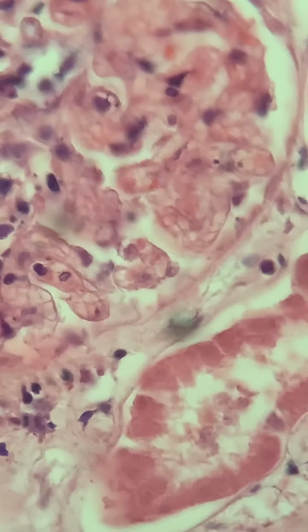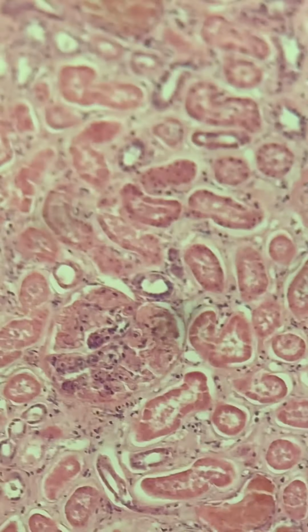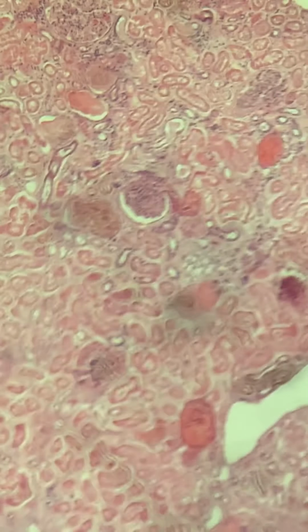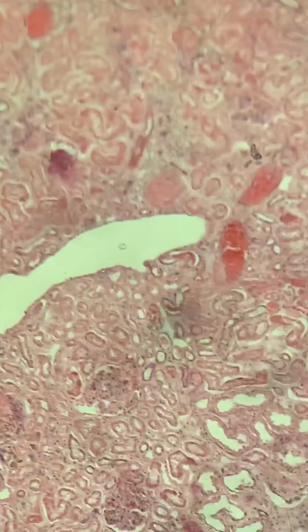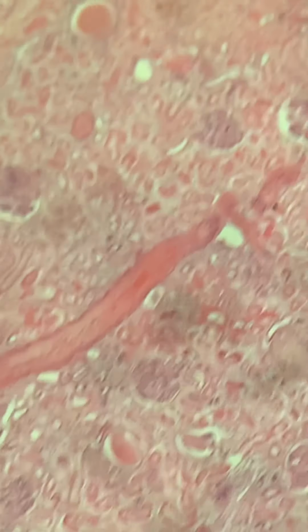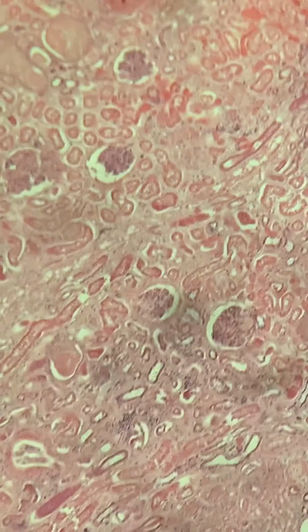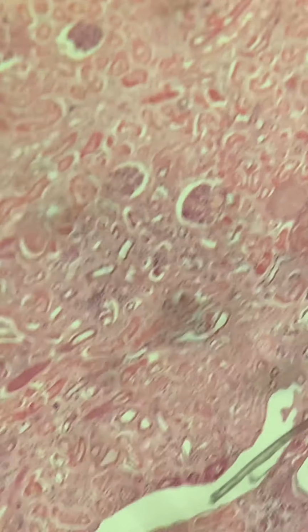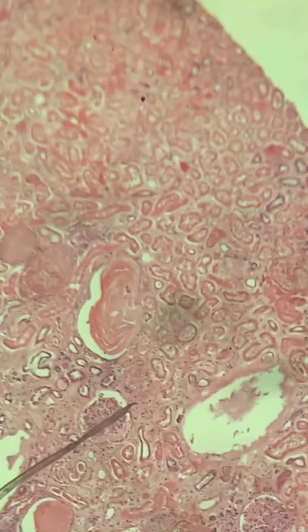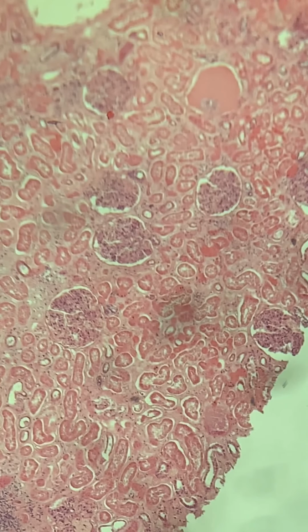I know it's going to be hard for me to show some microthrombi within some of these glomeruli. And well, I don't see it there. Let me just go back to a scanning view and see if we can see it from there. Perhaps we will find some as I go around. But you can see that this kidney was taking a beating. I don't see it now. But believe you me, there were some microthrombi in some of the glomeruli.